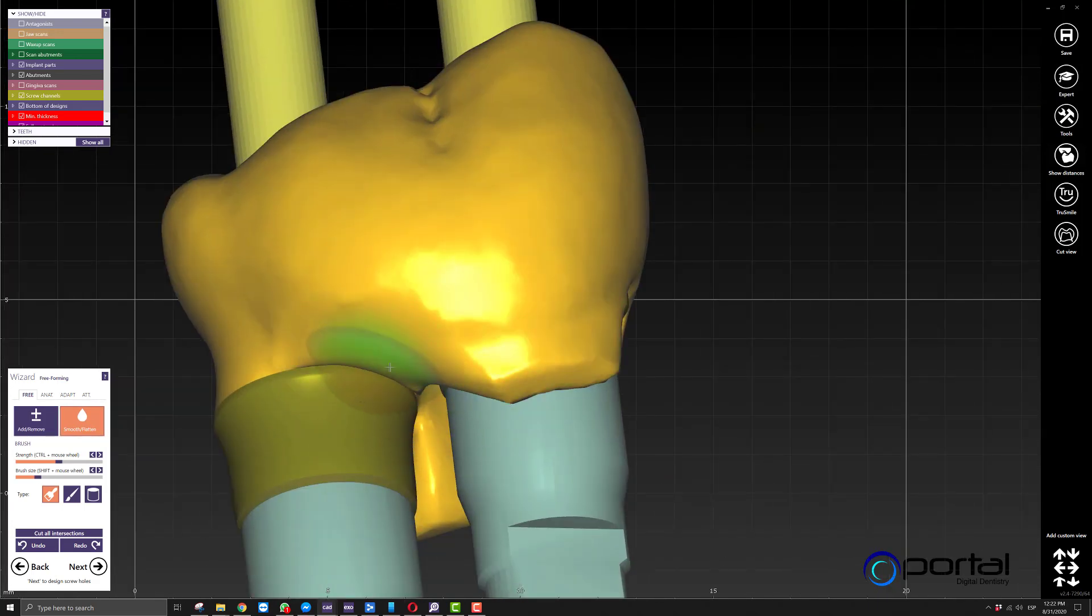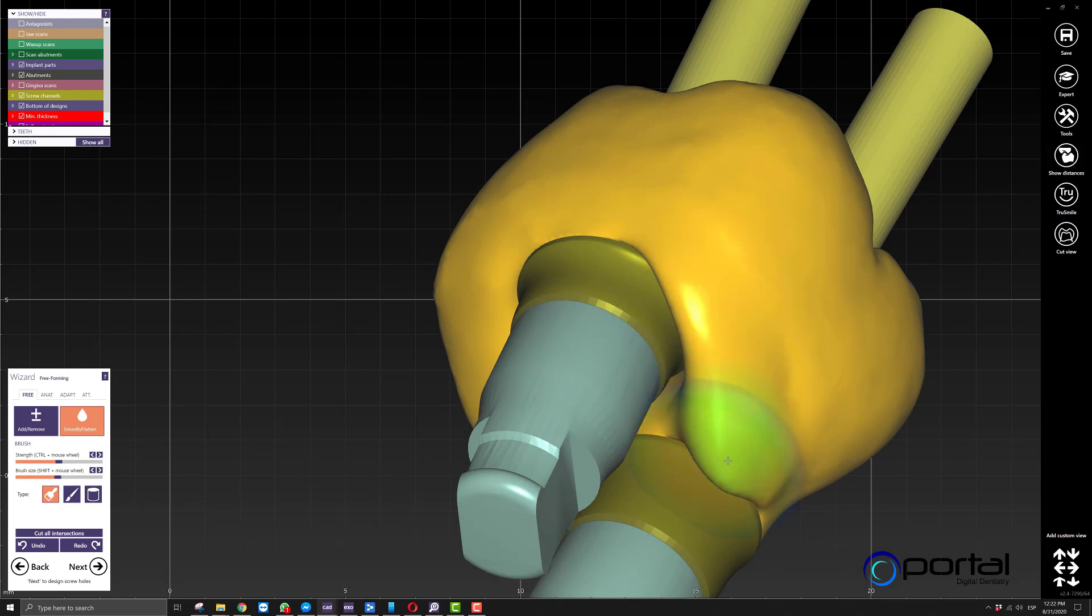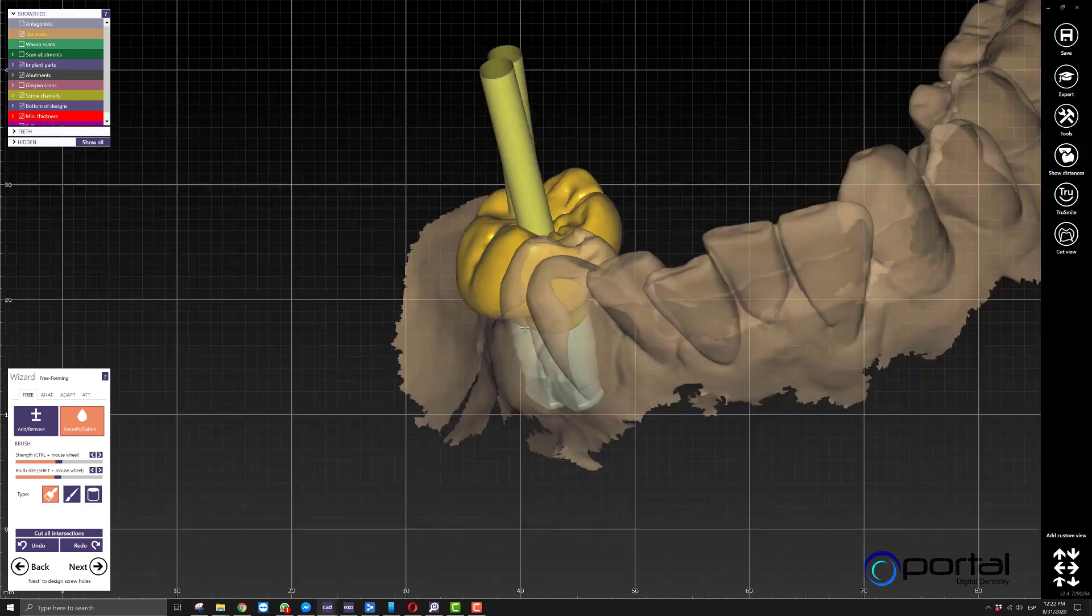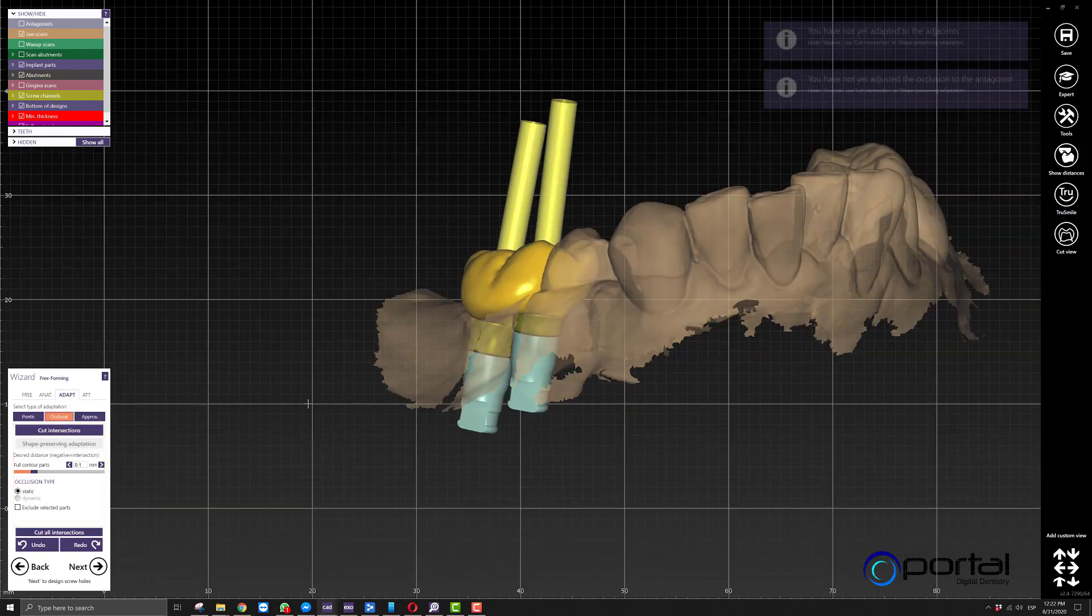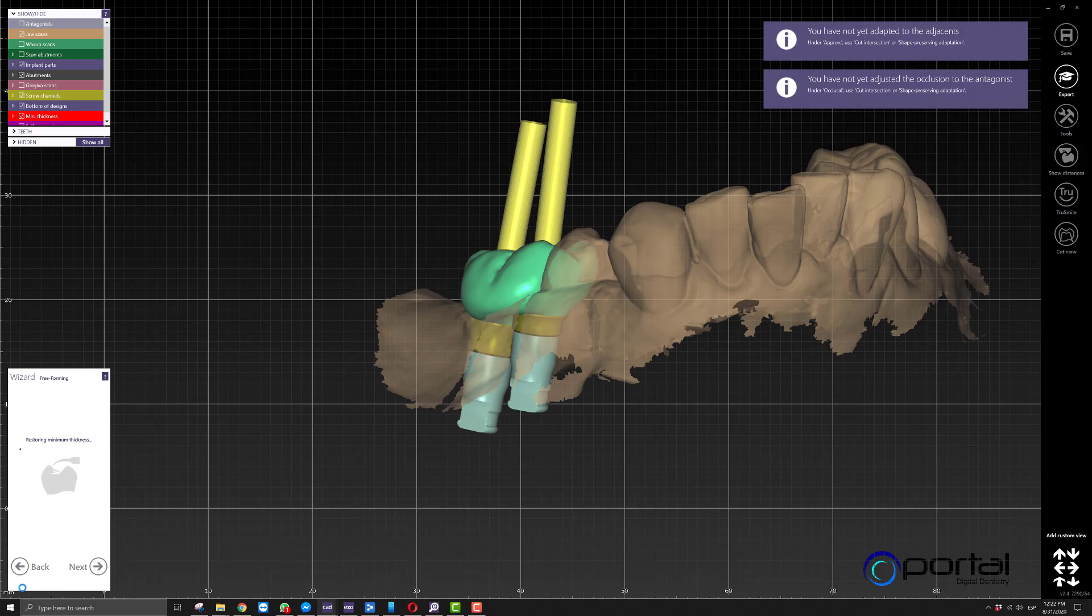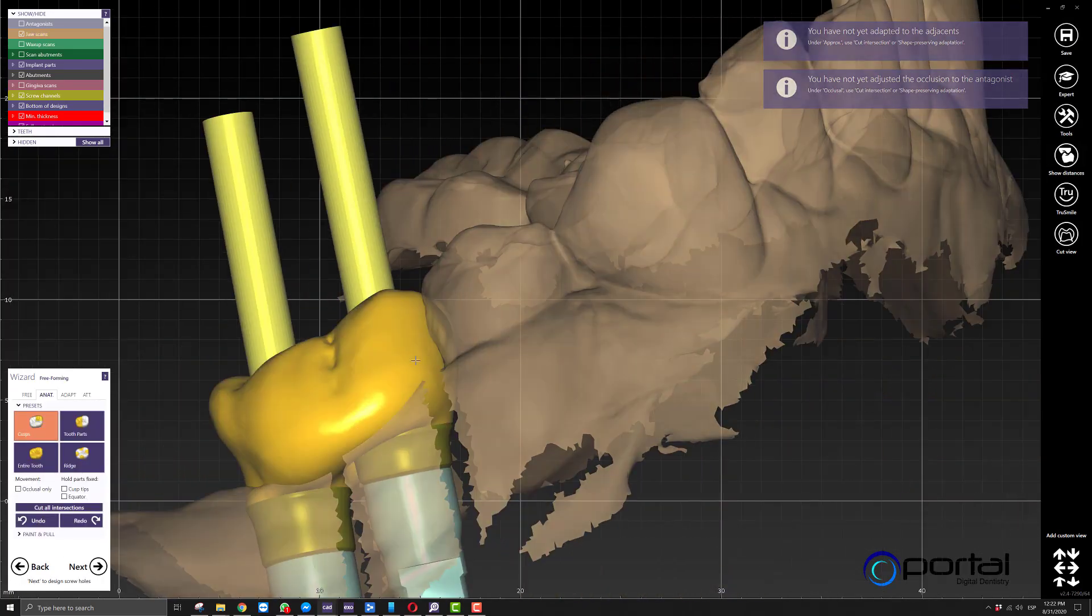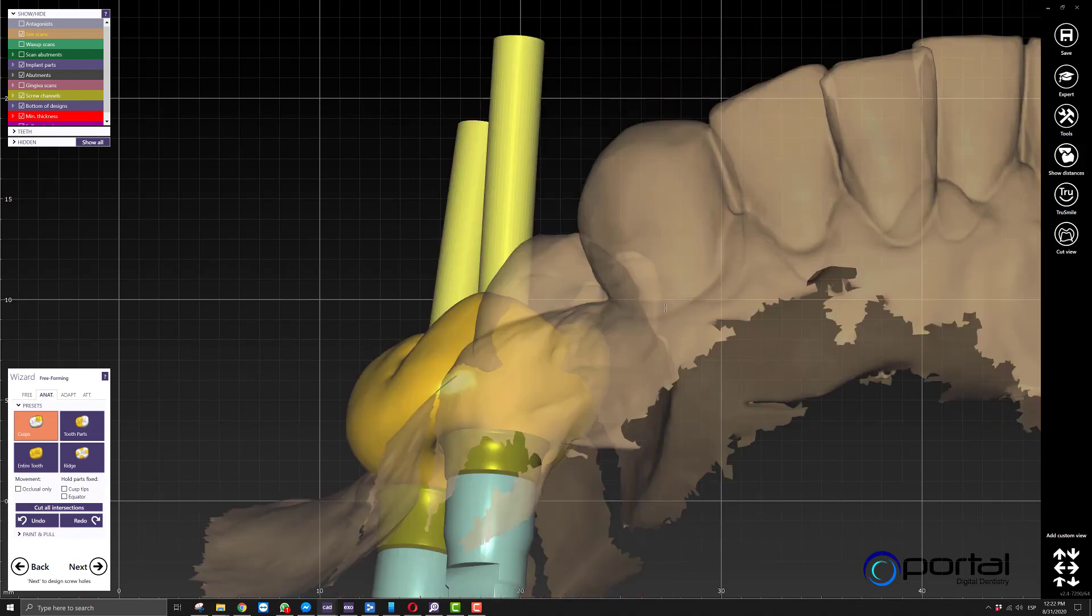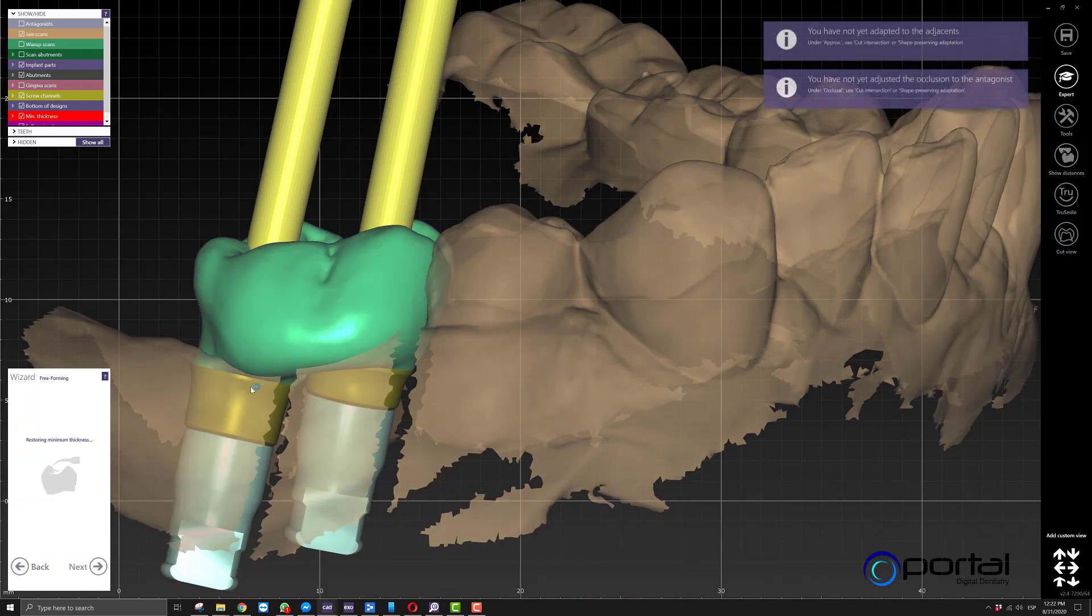Once the adaptation is done, we'll have to do some fine-tuning. Here, for example, get rid of all this extra information. Again, I'm not going to be overly picky—I just want to show the process. We'll get rid of this extra material, and there we have it, our final result. As we move forward, it'll ask for adaptations. Hopefully we took care of that in the previous step.